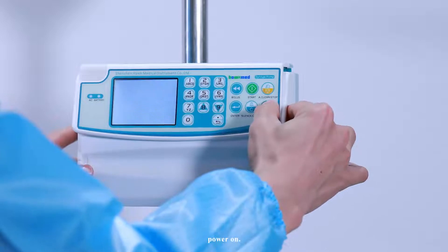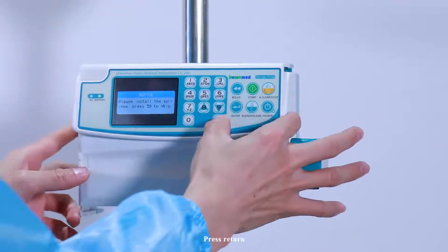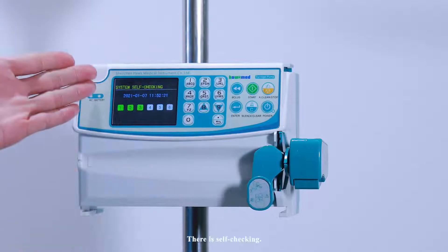Power on, press return. There is self-checking.